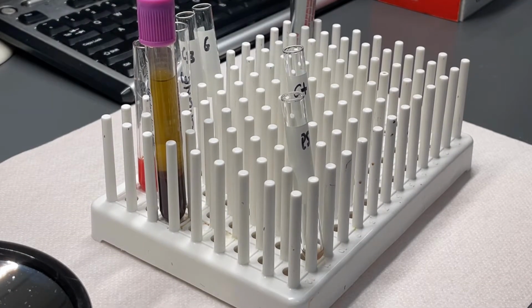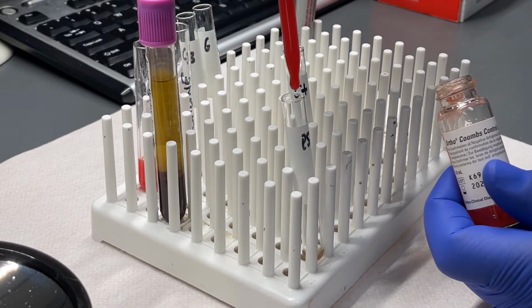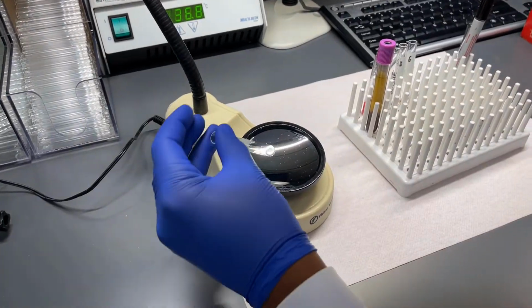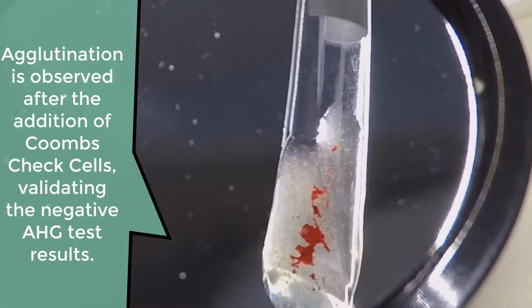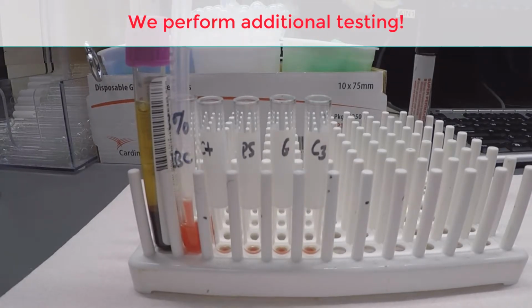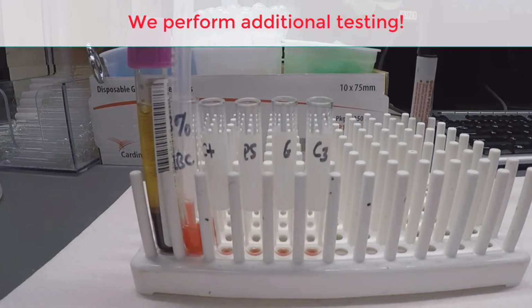Coombs check cells must then be added to confirm the results for a non-reactive polyspecific tube. If agglutination is seen in the polyspecific tube, then the addition of check cells is unnecessary. Agglutination seen during the second reading suggests that the patient's red cells are coated with complement.